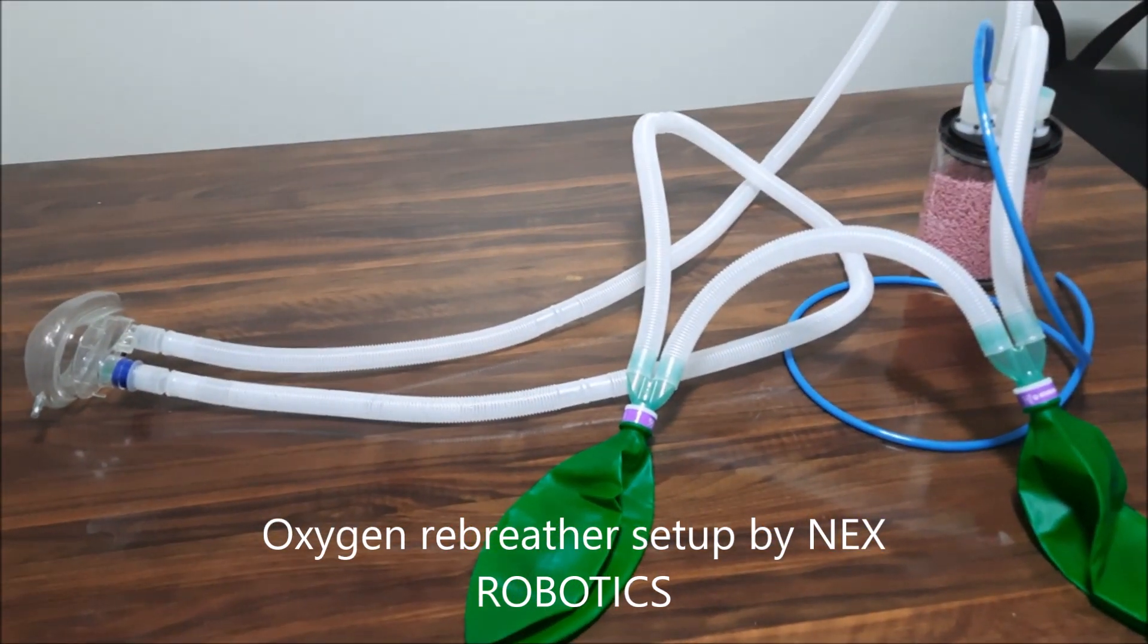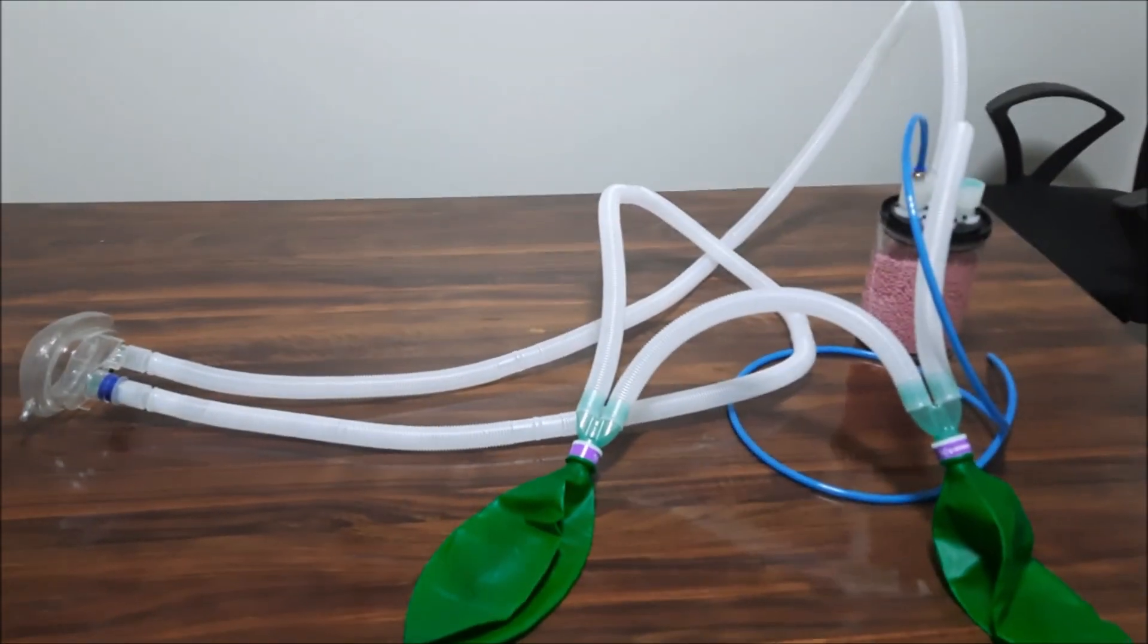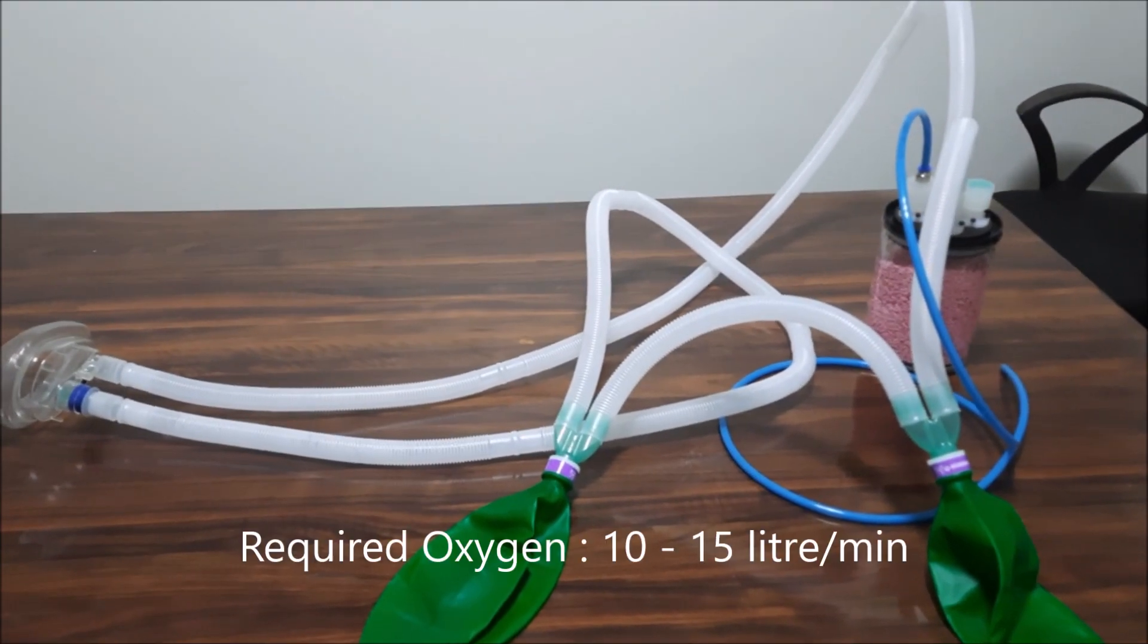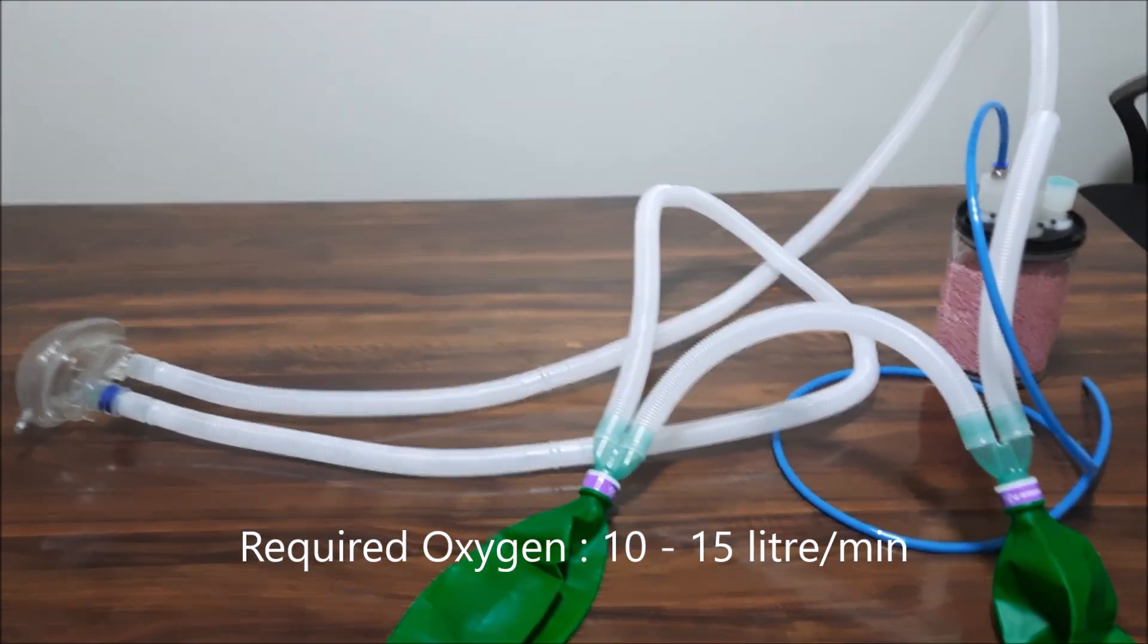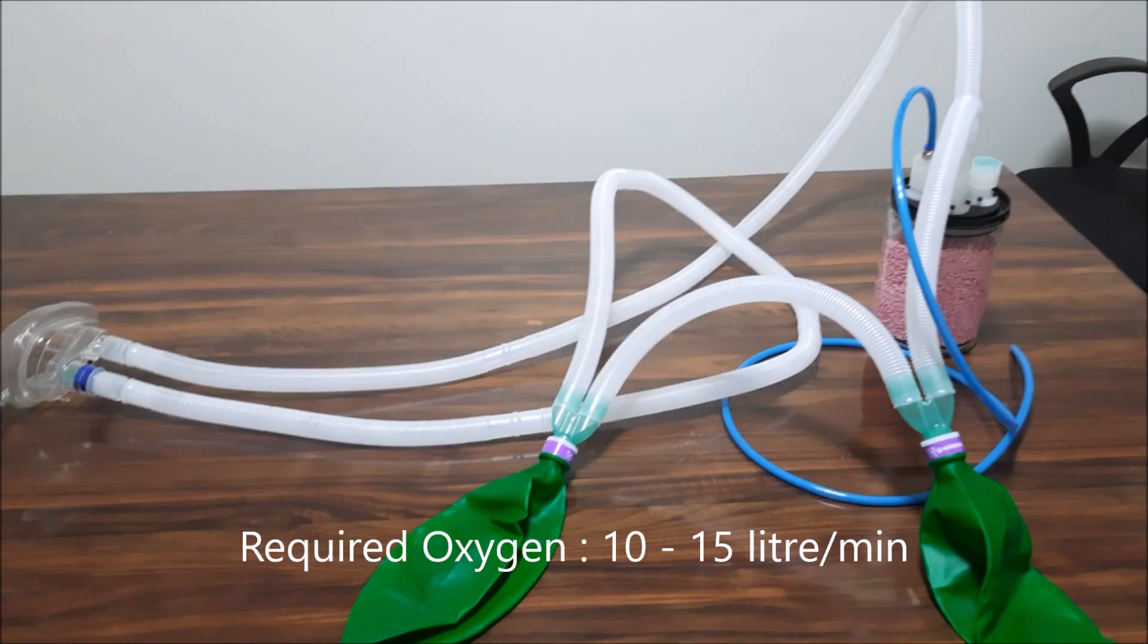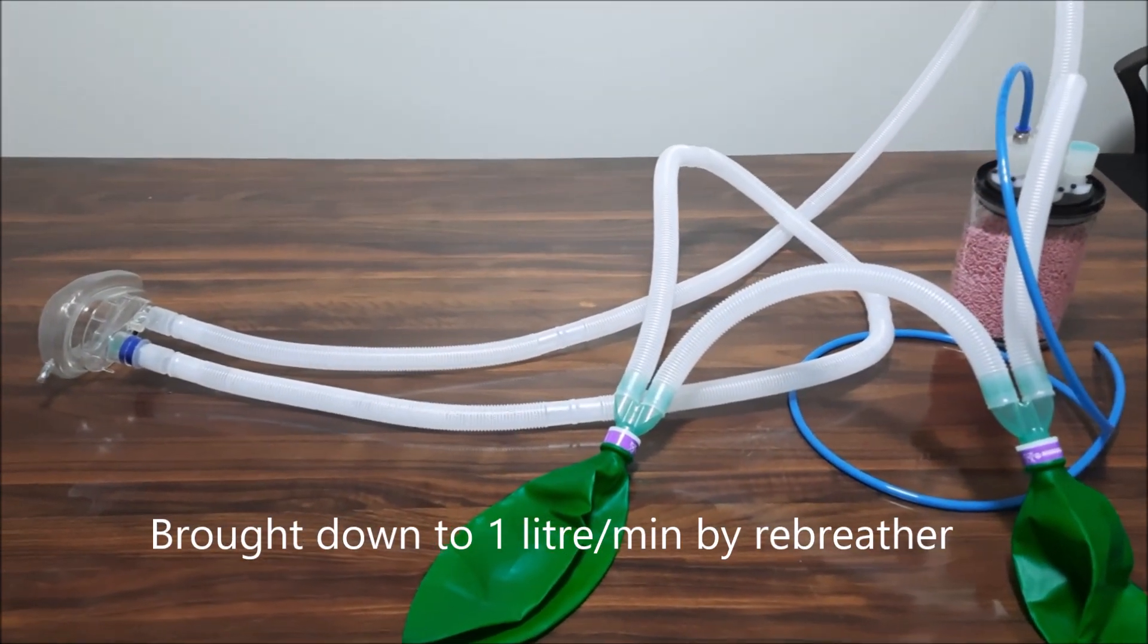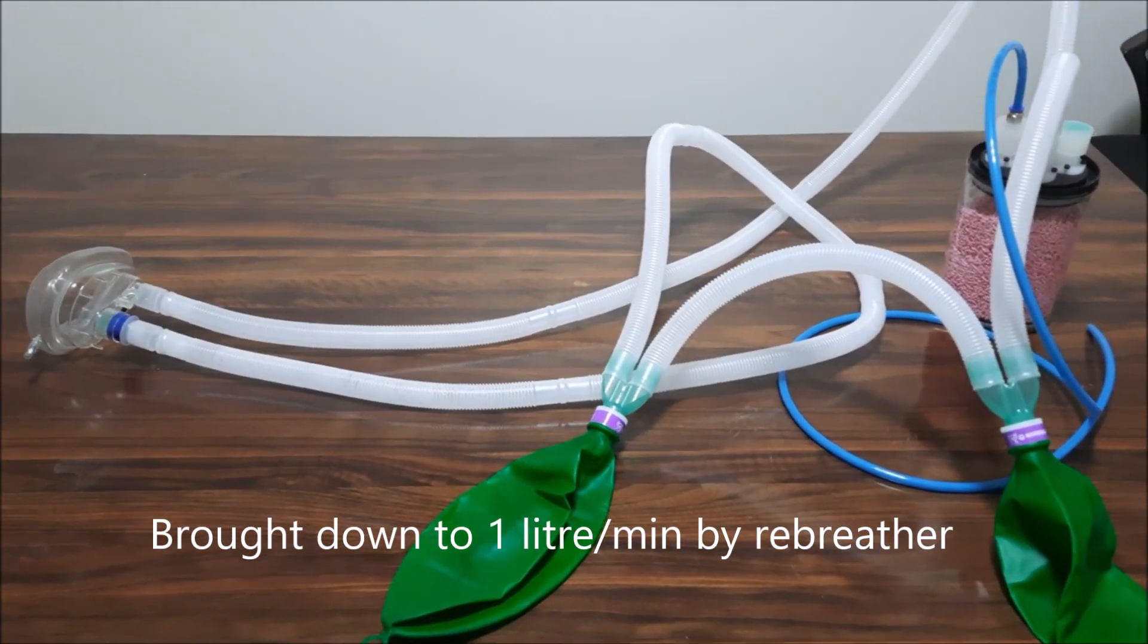Very recently we have been seeing a lot of shortage in oxygen supply. Generally a patient requires 10 to 15 liters of oxygen, and this rebreather circuit we believe can bring down that requirement to 1 liter per minute.